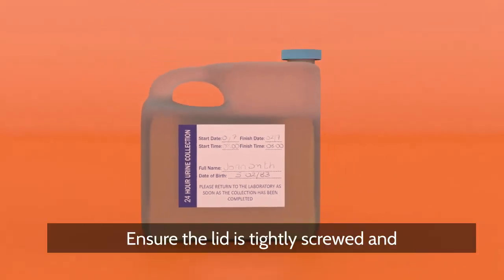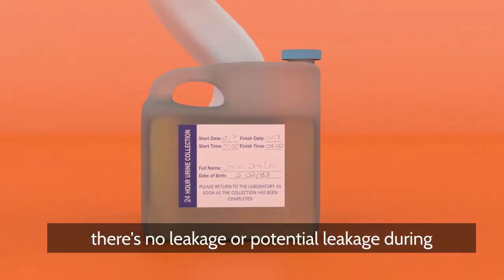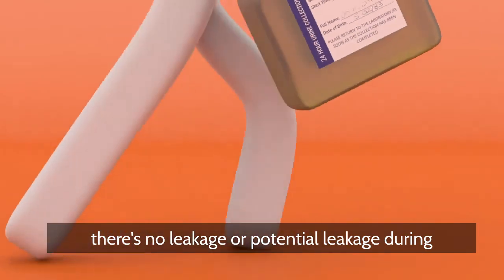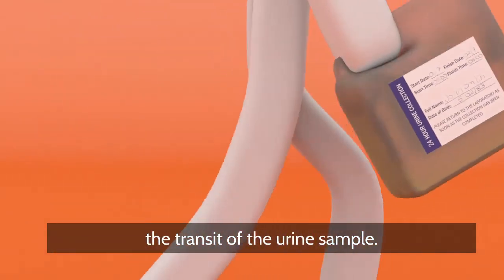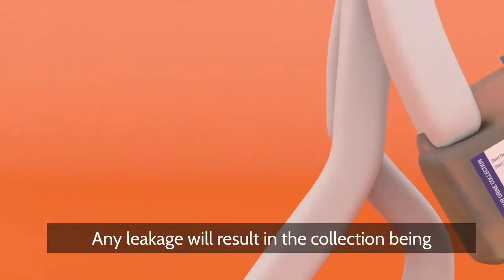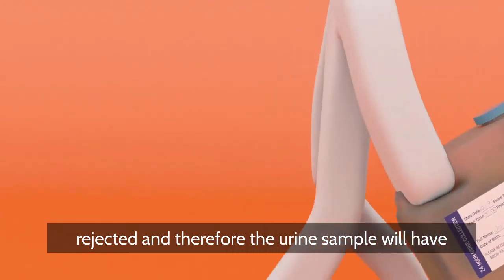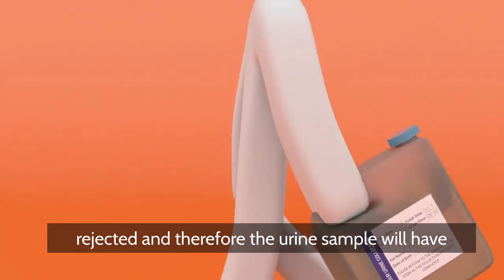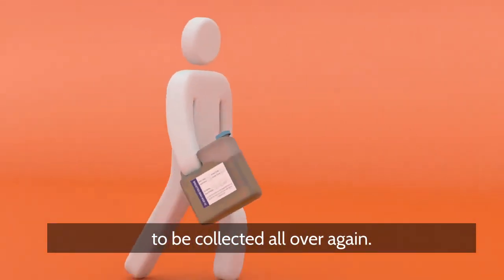Ensure the lid is tightly screwed and there is no leakage or potential leakage during the transit of the urine sample. Any leakage will result in the collection being rejected and therefore the urine sample will have to be collected all over again.